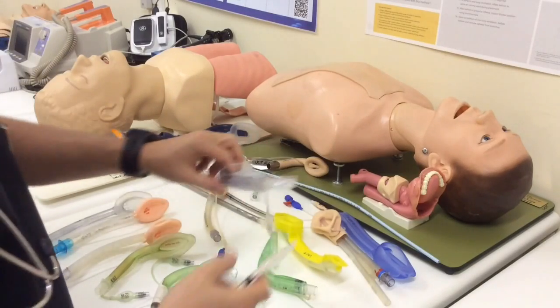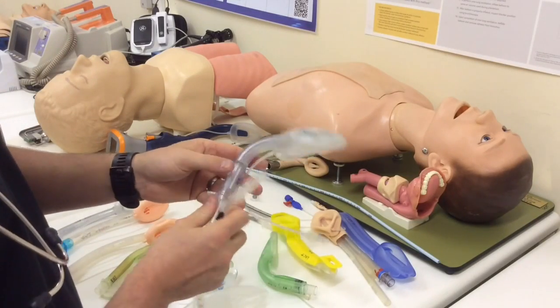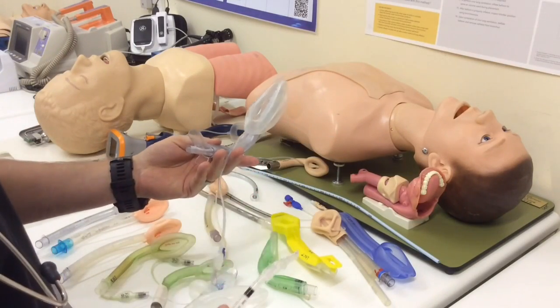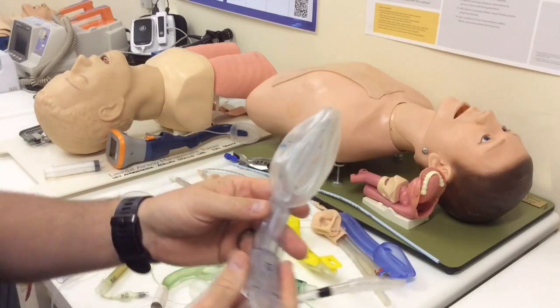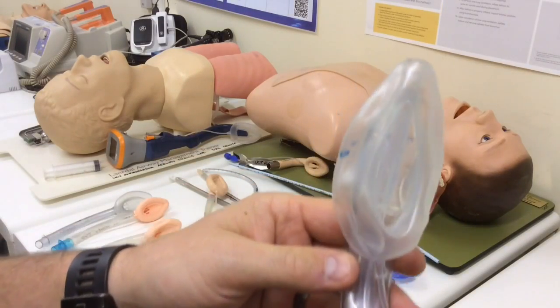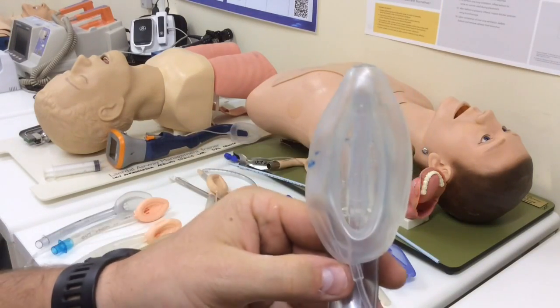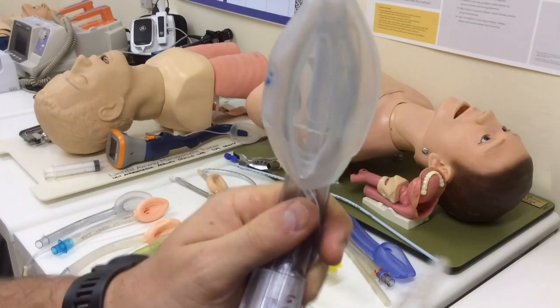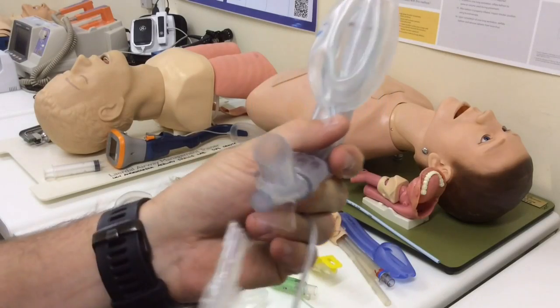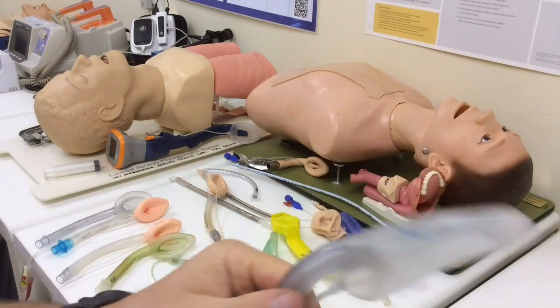Here's another example — a device often used as a rescue airway, the LMA Supreme. If you have a look on the inside, you'll see it's got these prominent epiglottic bars which make it very difficult to get a tube of almost any size through there. So now we have a bit of a conundrum.